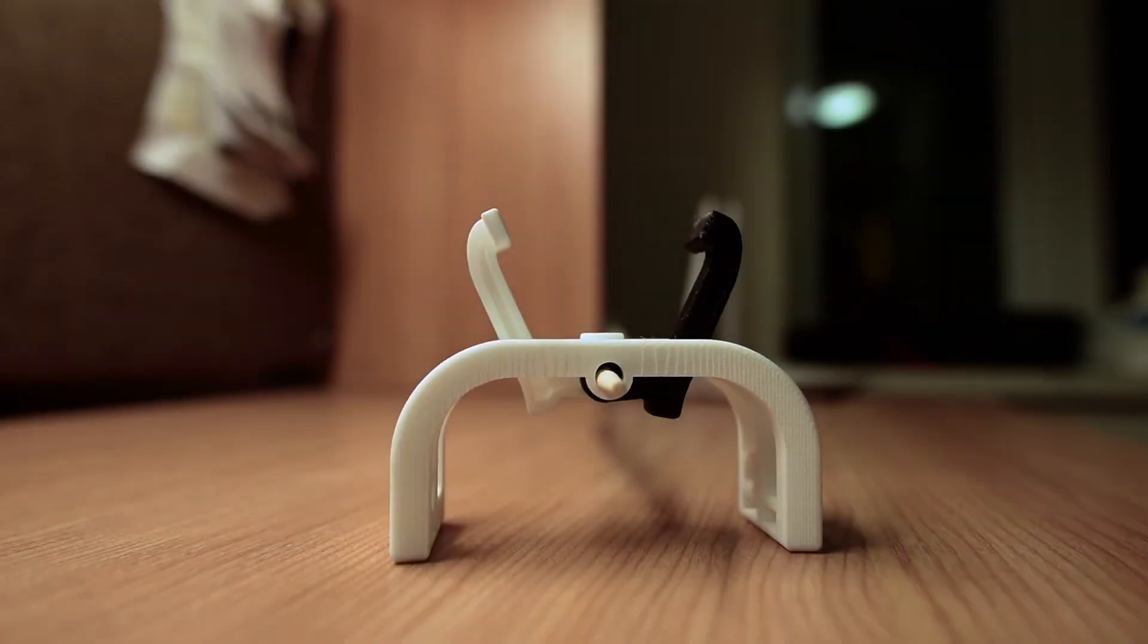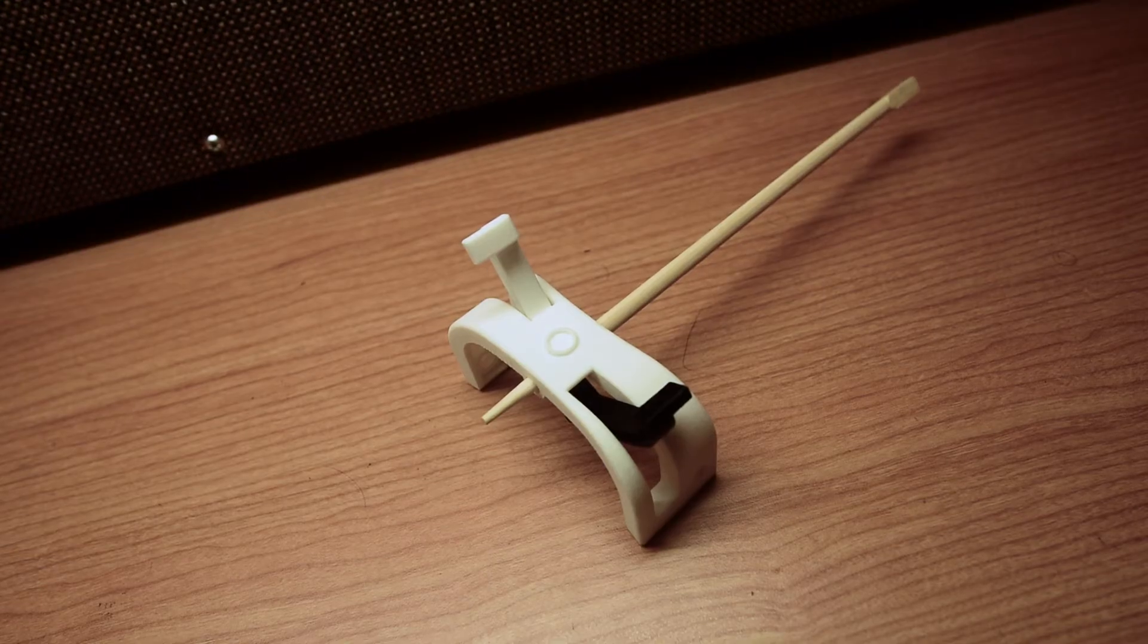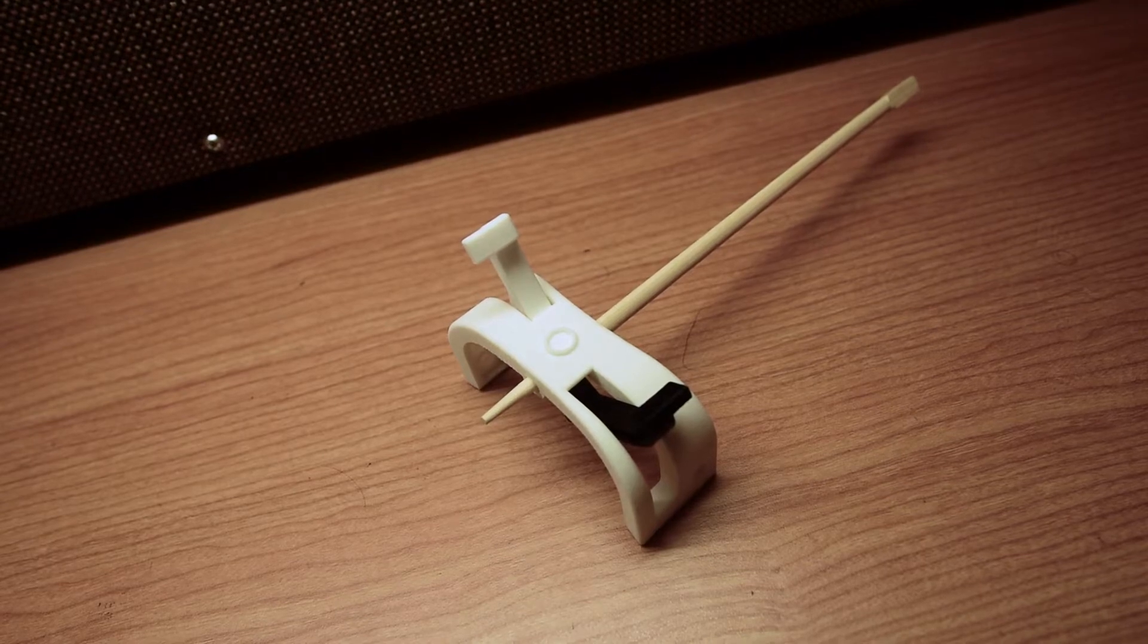Hello everyone, this is the adaptive mouse holder which our team, T1, has designed for Ken. Our challenge was to develop a 3D printable adaptive device for a mouse which someone with very limited wrist or finger mobility could use.